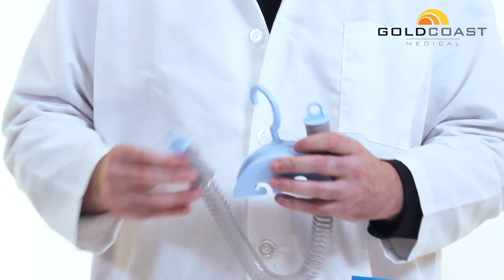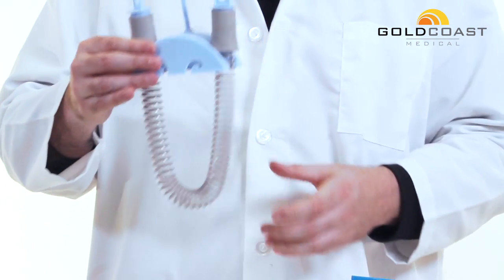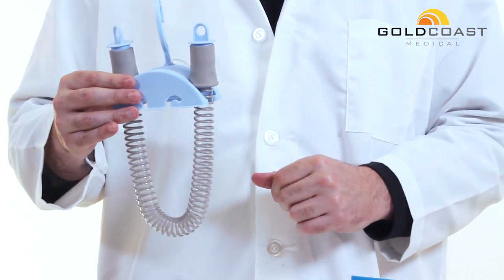And then you can simply snap into place, leave it there to soak for as long as it needs to soak.